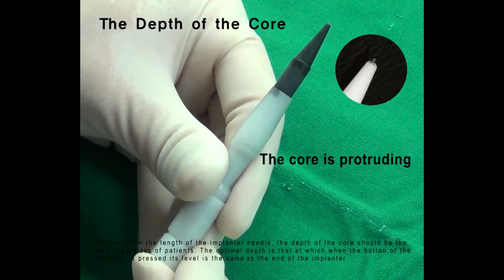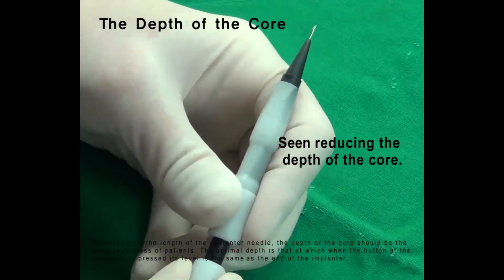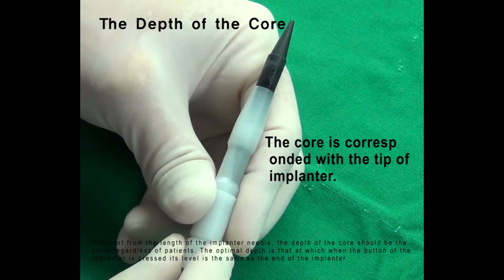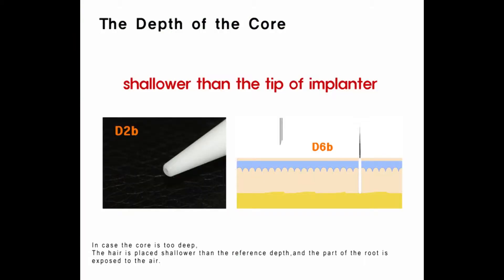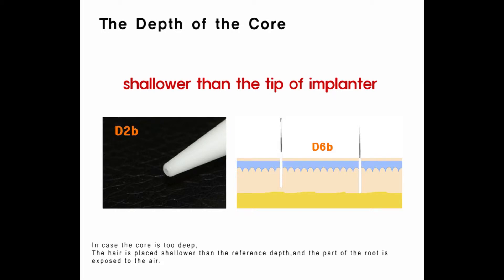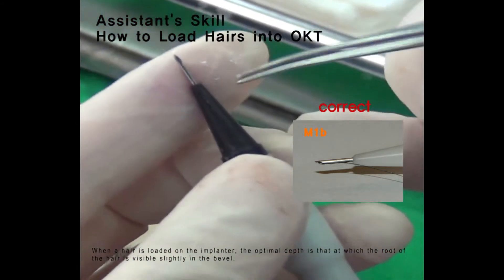Different from the length of the implanter needle, the depth of the core should be the same regardless of the patient. The optimal depth is that at which, when the button of the implanter is pressed, its level is the same as the end of the implanter. In case the core is too deep, the hair is placed shallower than the reference depth and part of the root is exposed to air. When a hair is loaded on the implanter, the optimal depth is that at which the root of the hair is visible slightly in the bevel.